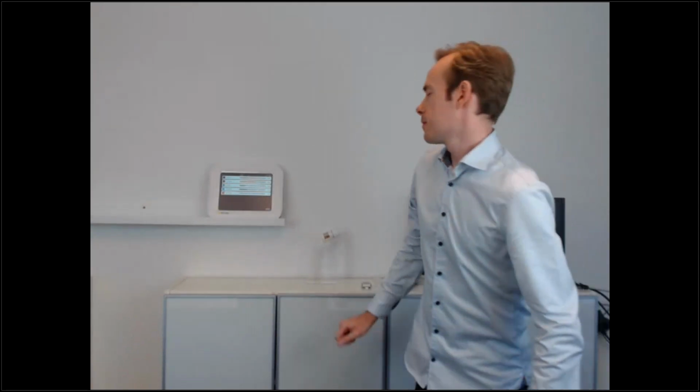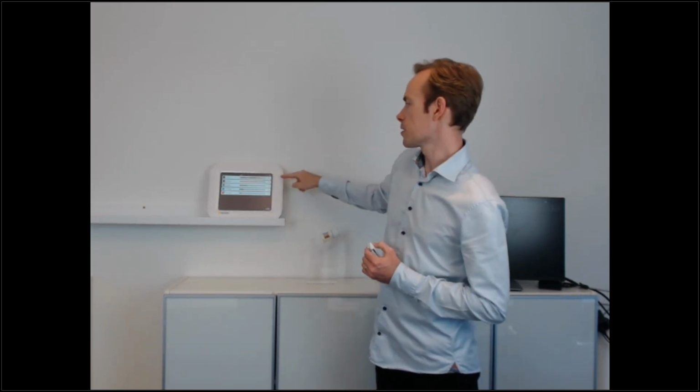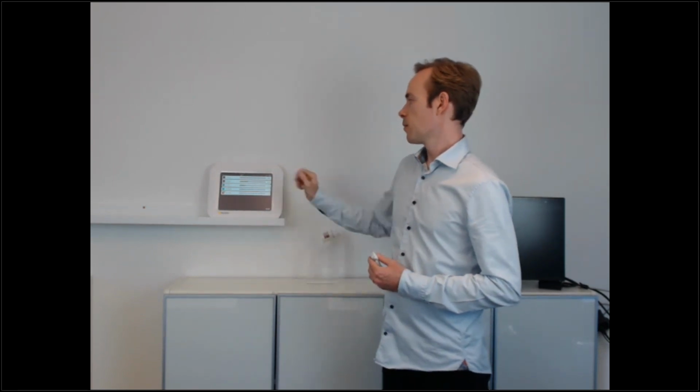So let's start with the basic parts. The system consists of a dosimeter, which measures radiation every second, and then sends that to a display unit, such as this one. The display unit, in turn, visualizes the measurements as colored bars symbolizing your dose rate, which means that when no radiation is on, these will be at 0, like now. When you press the pedal, it will go up, and when you release, it will go down again. So you will always have the possibility to see your personal exposure right now.